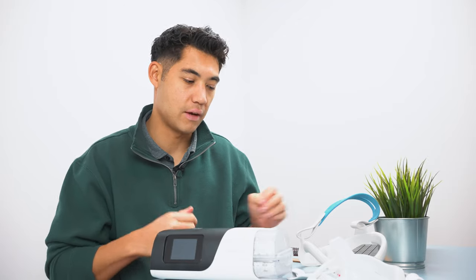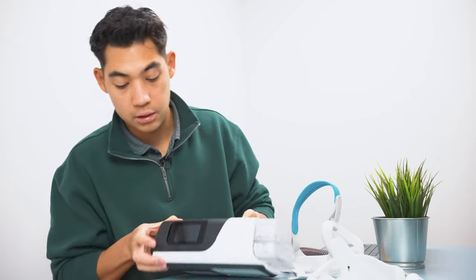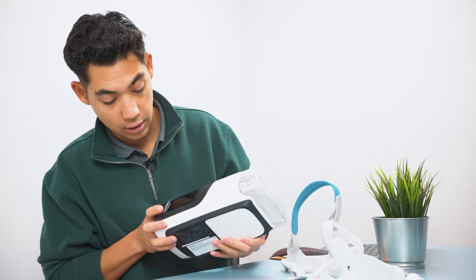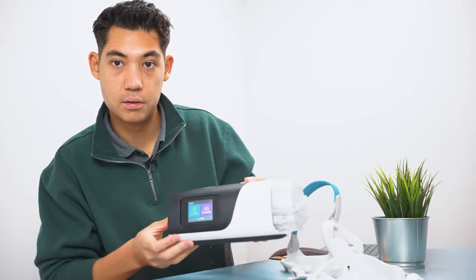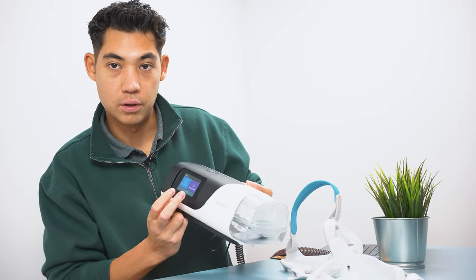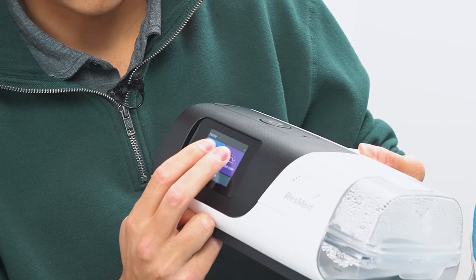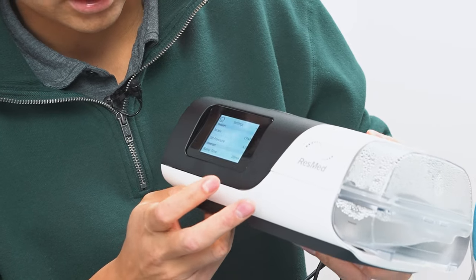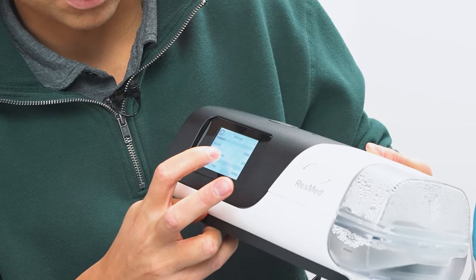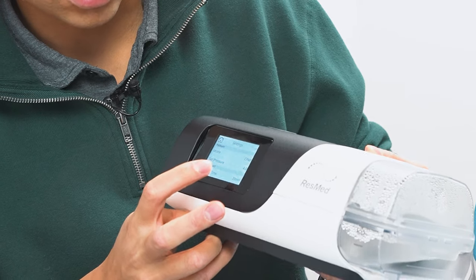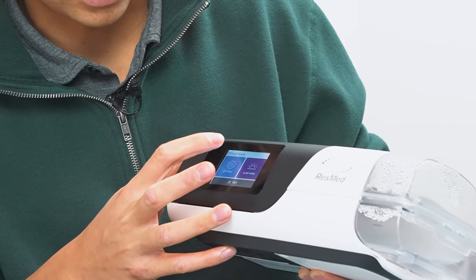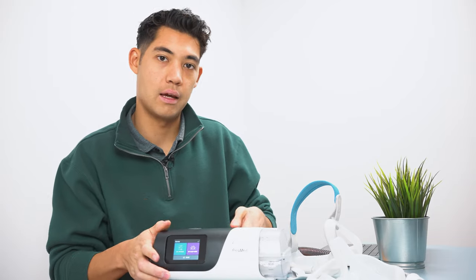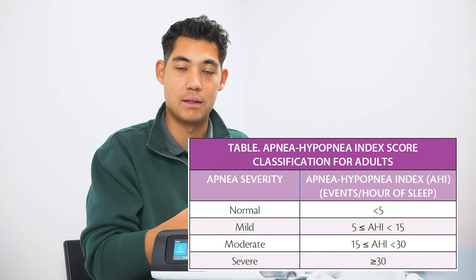Now, one of the main reasons for dry mouth is you have too much pressure in your device. Sometimes depending on what your sleep therapist gave you access to, you can do it in your normal menu. But sometimes you have to go to the clinical menu. To go to the clinical menu of the CPAP AirSense 11, you'll have to click both of these guys here and then you'll get to the clinical menu. Then you can click settings and you'll see mode CPAP pressure and you can change the pressure.